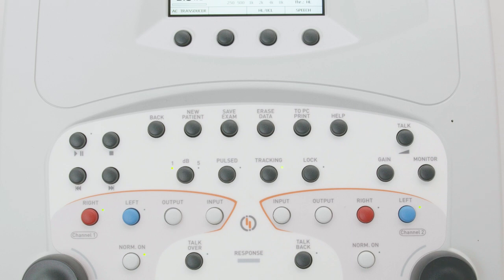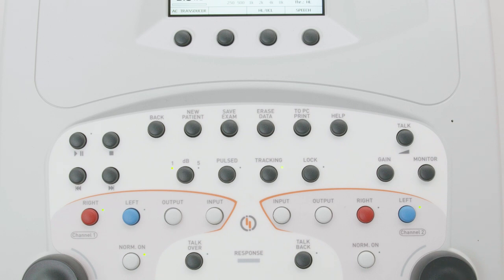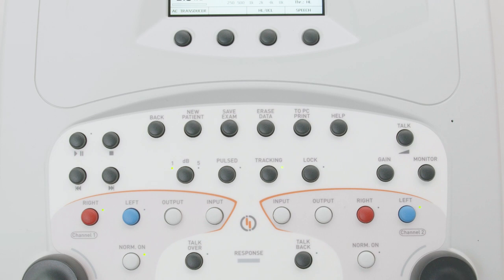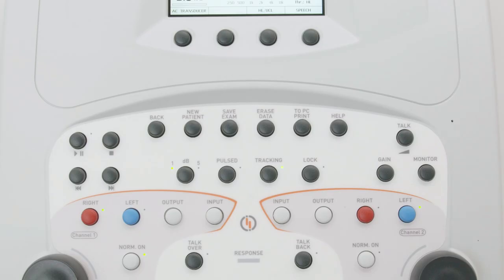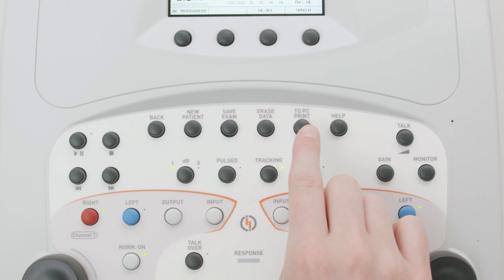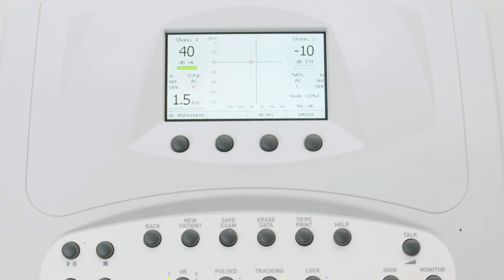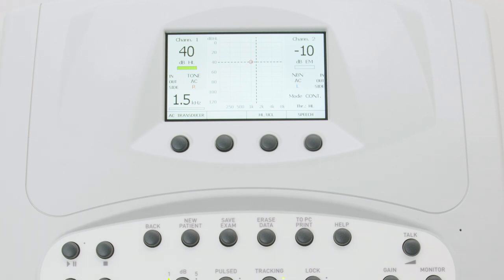Six function buttons are positioned at the top of the keyboard area, and their labels are self-explanatory. If the audiometer is equipped with a thermal printer, the print button starts printing the current test. Immediately below the display are four buttons associated with configurable soft keys, whose function can change according to the status of the instrument.